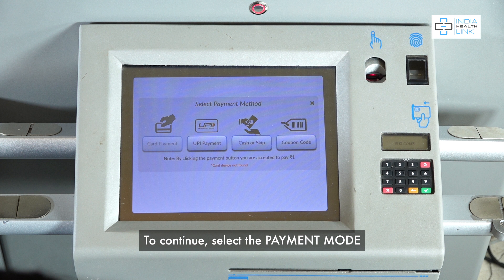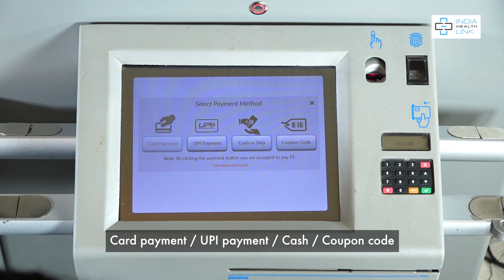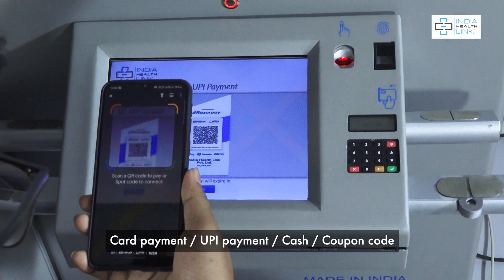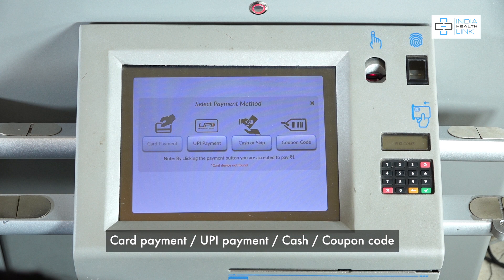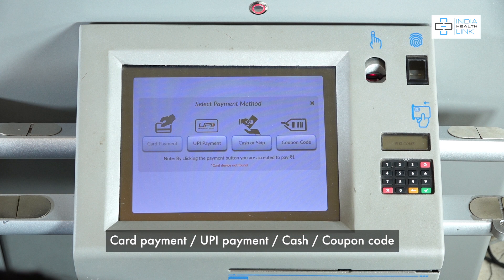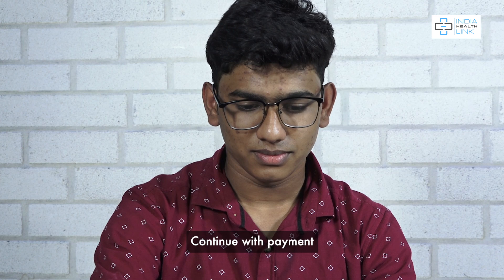To continue, select the payment mode: card payment, UPI payment, cash, or coupon code. Continue with payment.